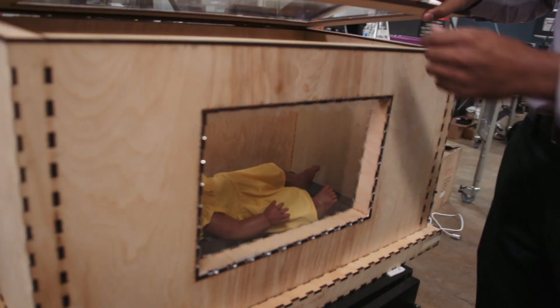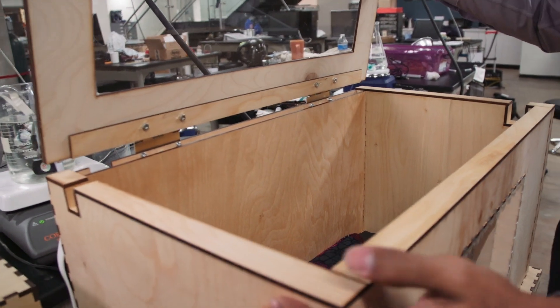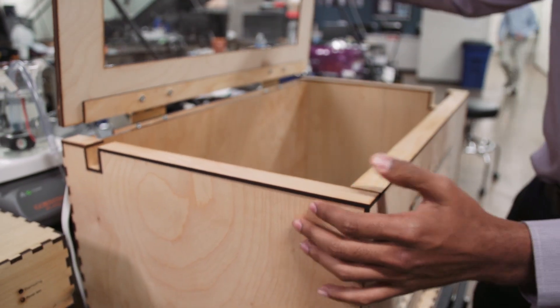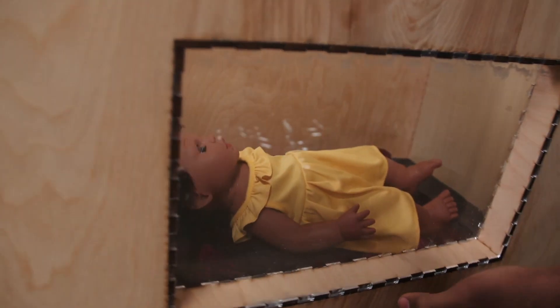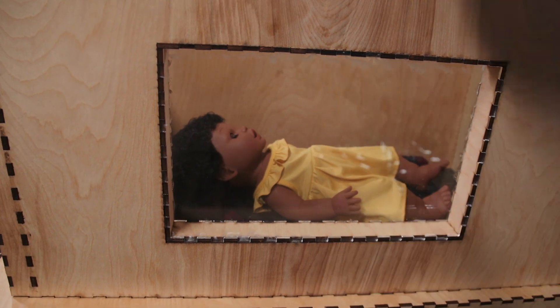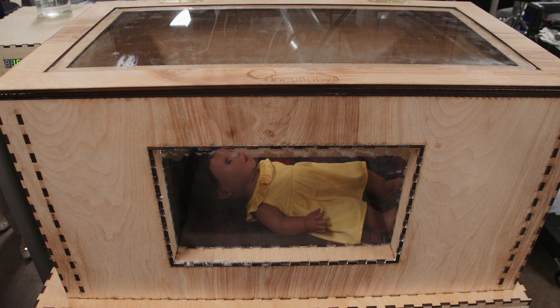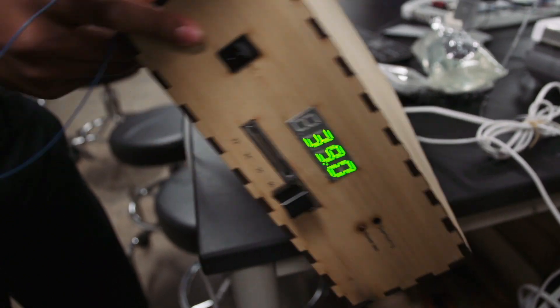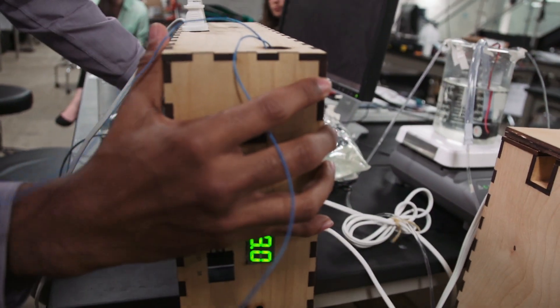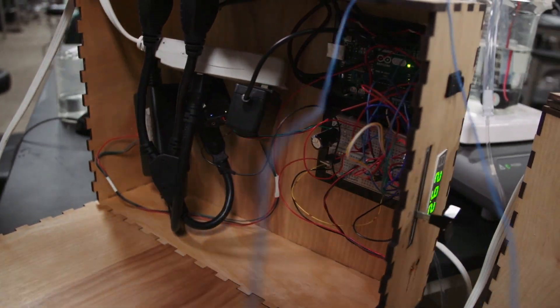So overall, we were able to design a low-cost neonatal incubator prioritizing temperature feedback and safety. We used a double-walled box design with polystyrene inside the walls in order to retain temperature. The neonate is heated using two commercial heating pads — one in the base of the incubator and one in the back wall. The heat travels through our homemade Rice fabric mattress, and a temperature feedback mechanism records the temperature of the neonate and automatically adjusts the heating pads to maintain the neonate around 37 degrees Celsius.